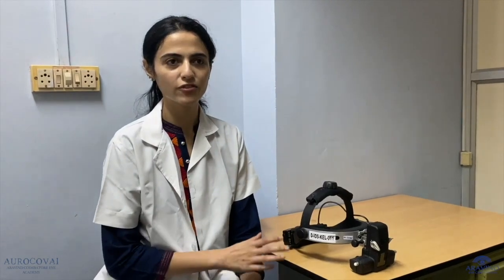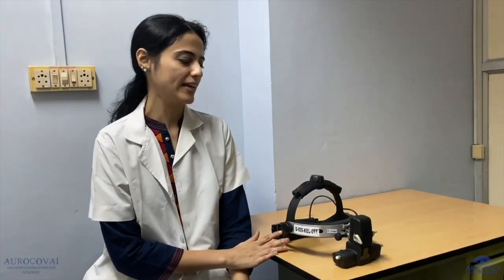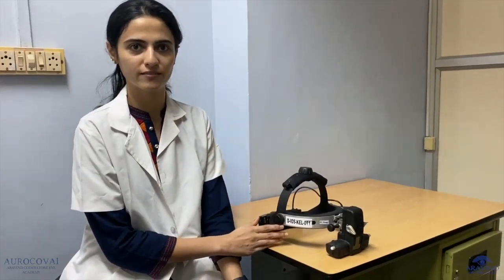Hello everyone. In this video we are going to be talking about indirect ophthalmoscopy. This is a very important skill in ocular examination, and in this video we'll take you through a stepwise guided approach on indirect ophthalmoscopy.